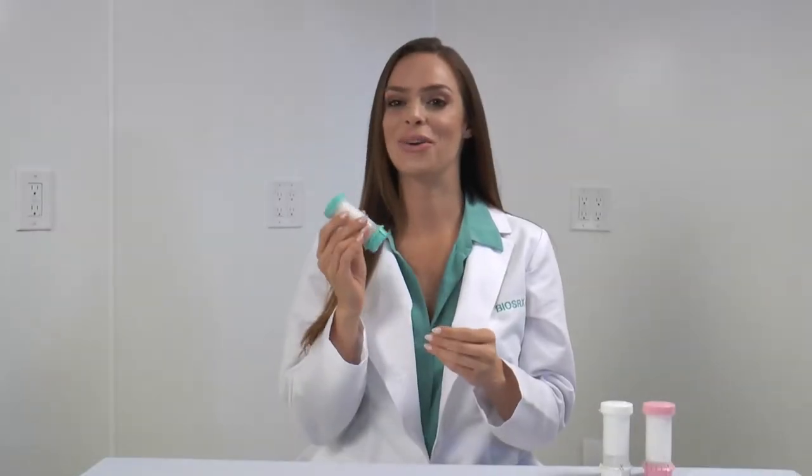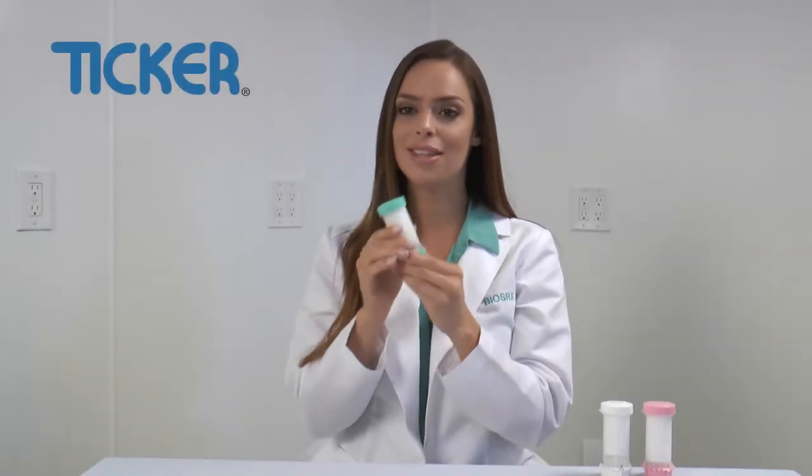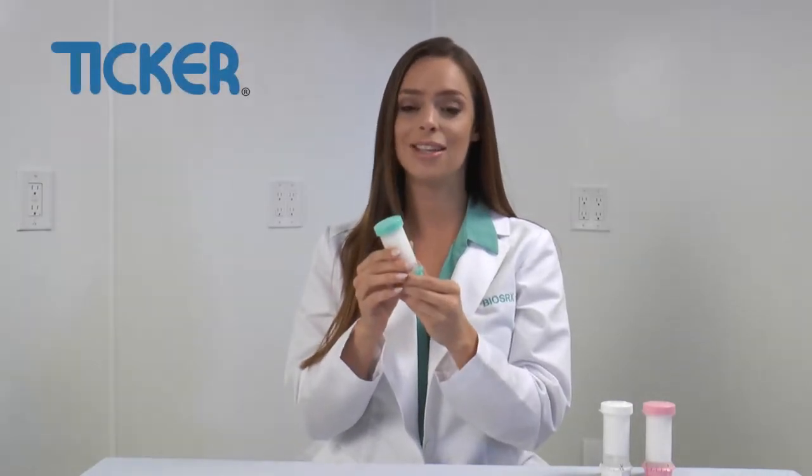Thank you for choosing Ticker Transdermal Dispenser. I'm going to show you how to dispense your medication using Ticker. The beauty of this device is that you have complete control of your dosing.